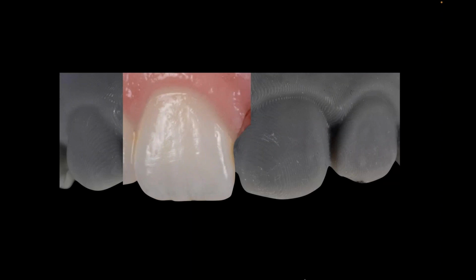So I'll just tell you up front, I don't accept veneer cases digitally. Now I know that might sound extreme to some people, but I don't for many reasons, and I'll break them down as we go through it. Doesn't mean that I don't accept digital cast. Of course I do. I have 3 printers upstairs, but when it comes to veneer or single central, that's a line draw for me, where I still want physical impressions because I need the detail that you're seeing on the screen right now. Without that detail, again, look at the printed cast as compared to a real tooth. It's a huge difference for us.